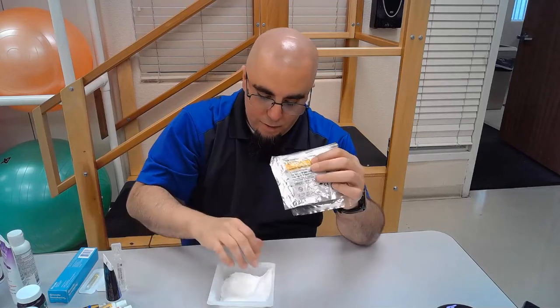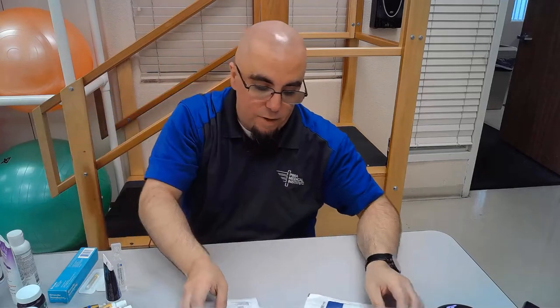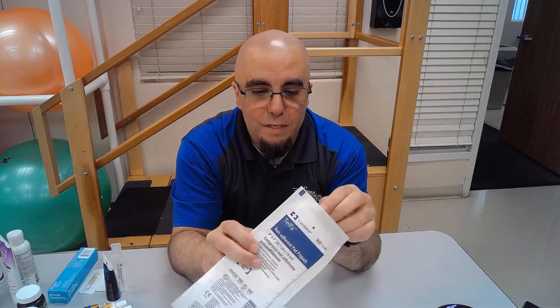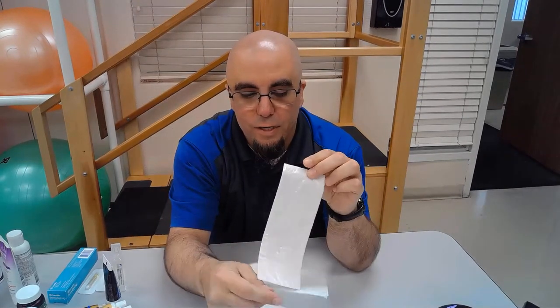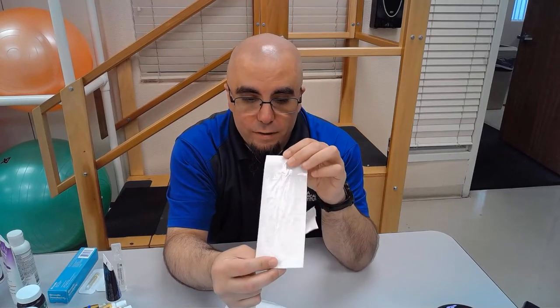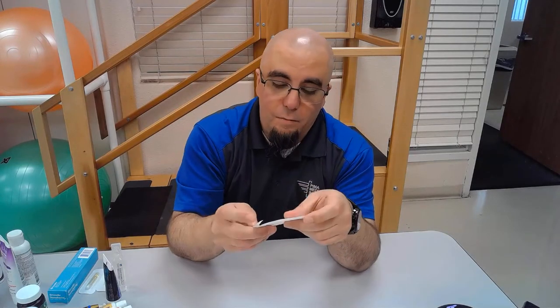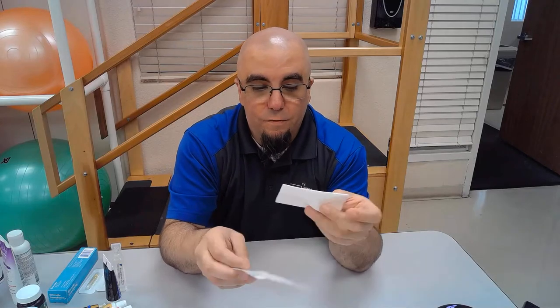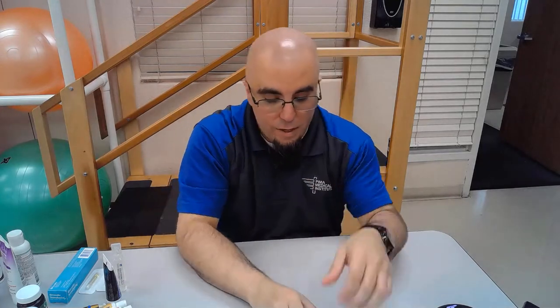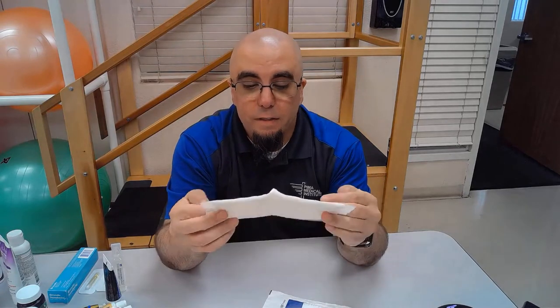In addition to those, there are all kinds of other dressings. Here we have a non-adherent pad — you'll see these often across the front of a knee after surgery, because the knee has staples and you don't want gauze sticking to the staples. This will keep gauze from sticking to staples. Here's another non-adherent pad — non-adherent pads usually have a nice shiny texture to them.